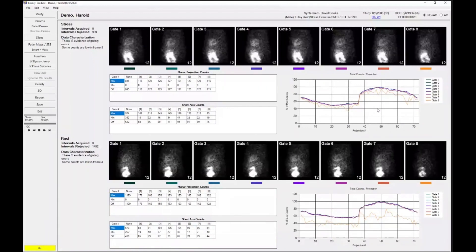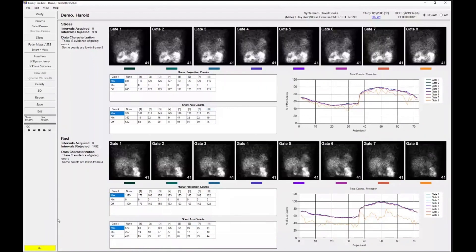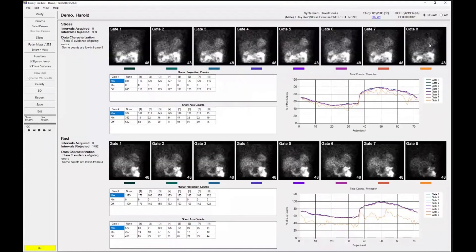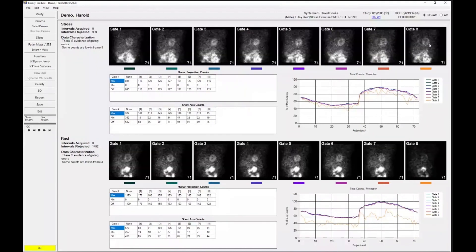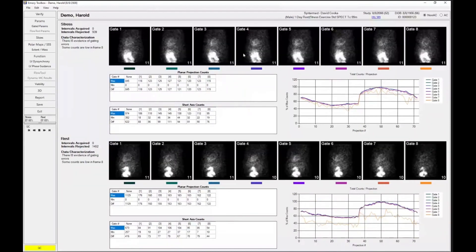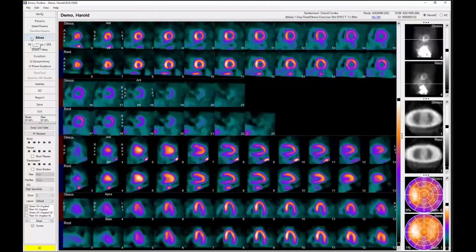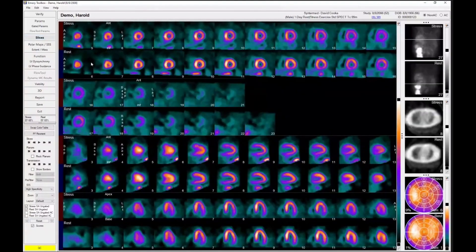In this particular study, this would not be worrisome. It's yellow. It's not red. It's just a caution. But again, it's done some automated QC while we're going through the process to assure that the study is of the best quality that can be.